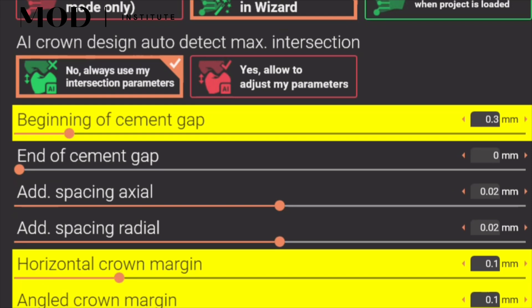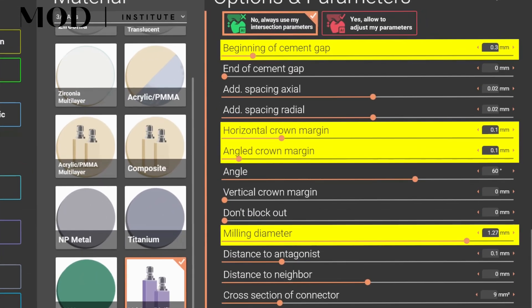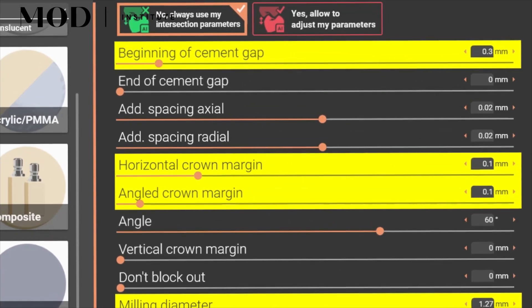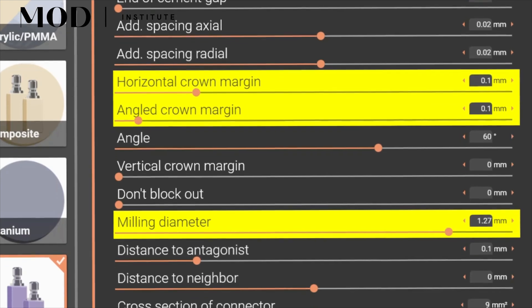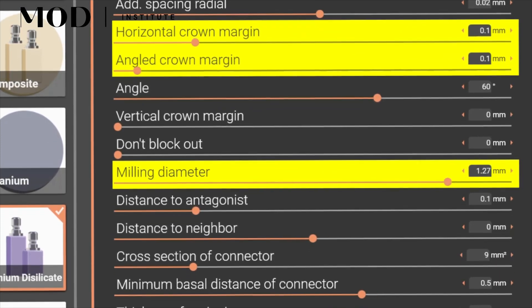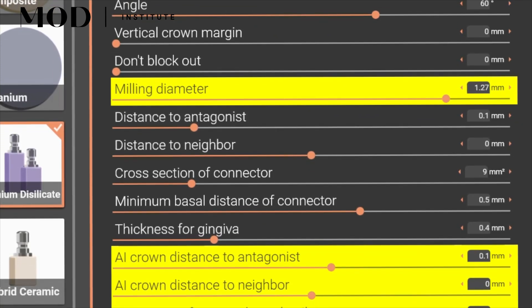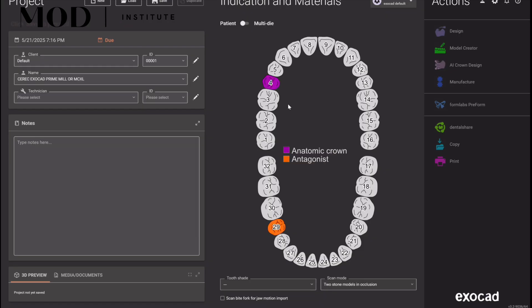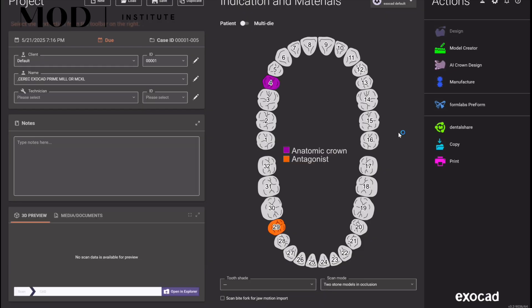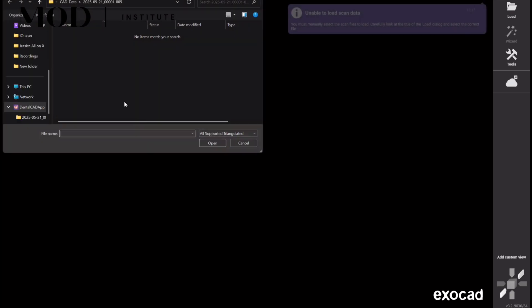The beginning of the cement gap is 0.3. Your horizontal crown margin and angle crown margin — that's your margin boost — is going to be 0.1. So again: beginning of cement gap 0.3, horizontal crown margin 0.1, angle crown margin 0.1. That is your margin boost that Cerec usually needs so it doesn't chip in the mill. Milling diameter 1.27, assuming you're using the normal step bur. All my other settings are basically 100 microns from antagonists, 0 microns from neighboring tooth for your proximal contacts. That's it.